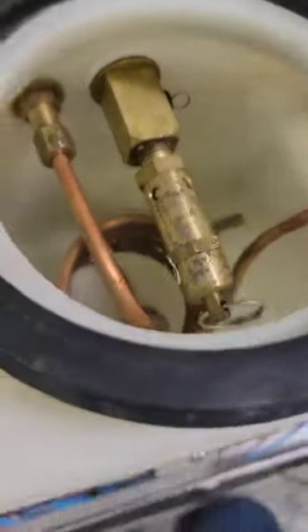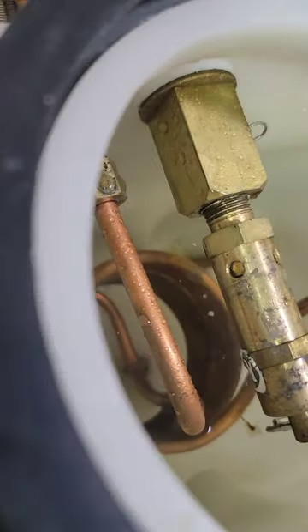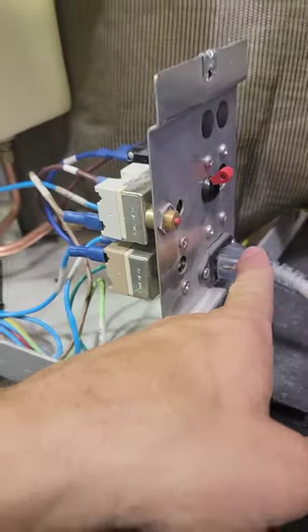Make sure you've got water in the chamber — enough to cover that coil. Check the water level. You're plugged in, on a good power source. This switch is up, this switch is in.